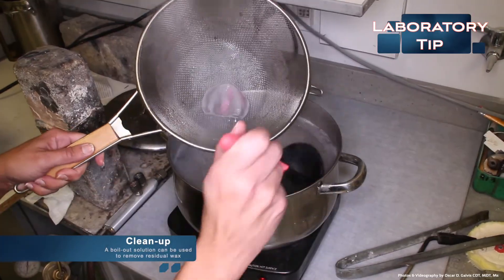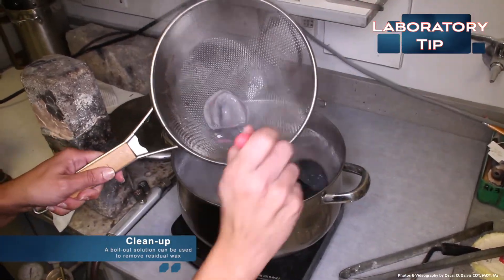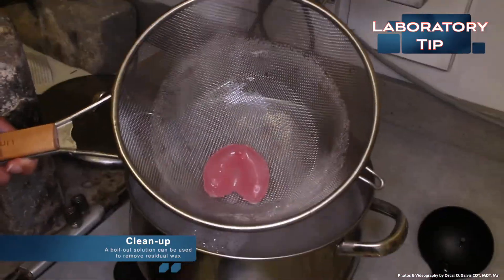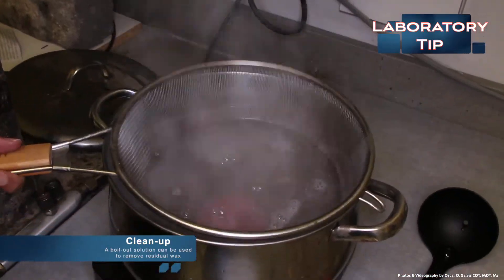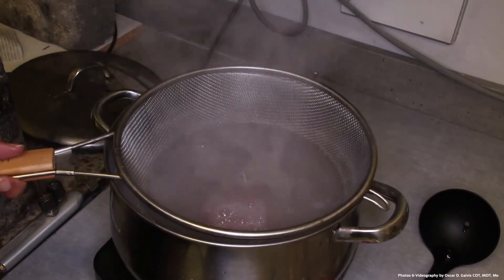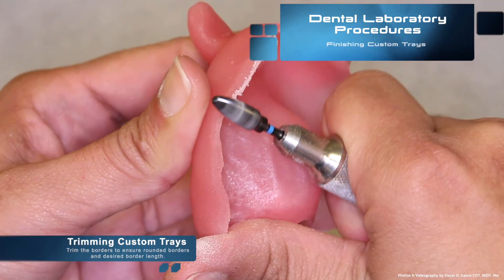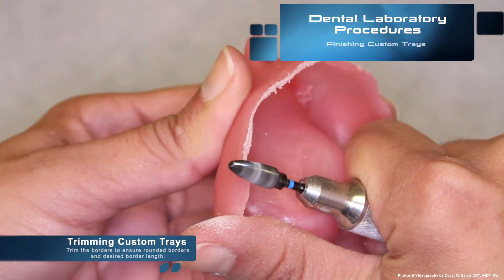Some curing units can produce a significant amount of heat, causing the wax to melt and make somewhat of a mess. For easy cleanup, you can put boil out solution in a pot and remove the residual wax from the custom trays and the cast. Once the trays are free of wax, you can begin trimming the borders of the custom tray.